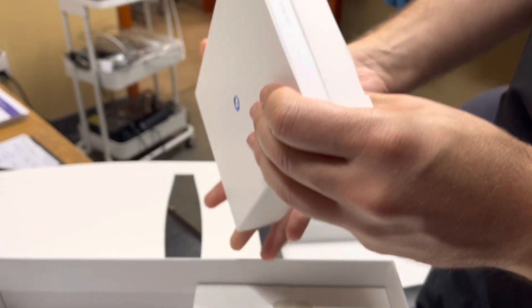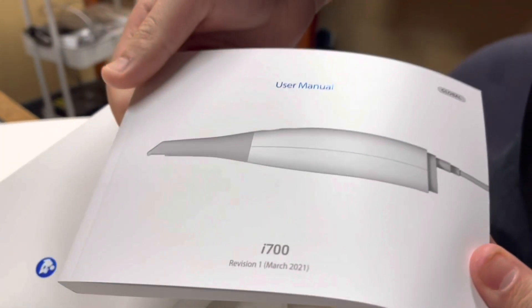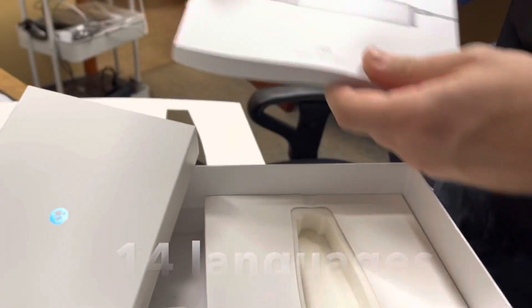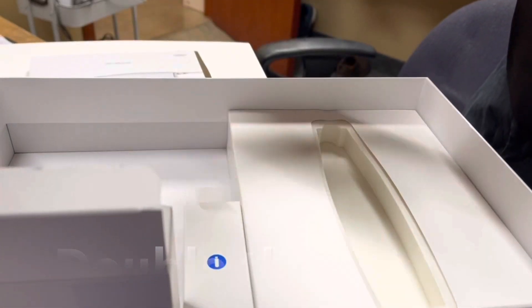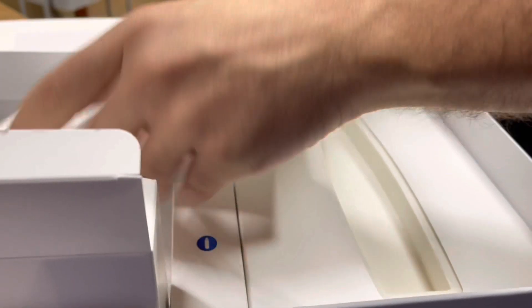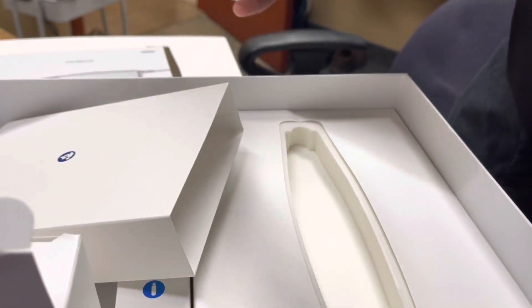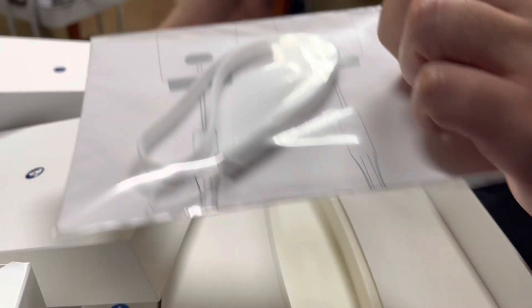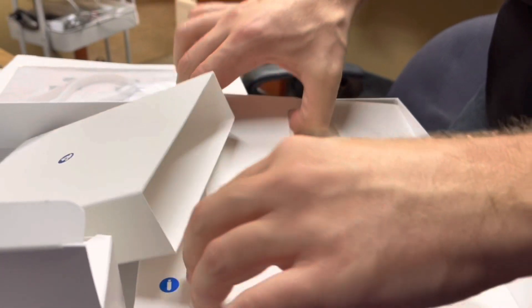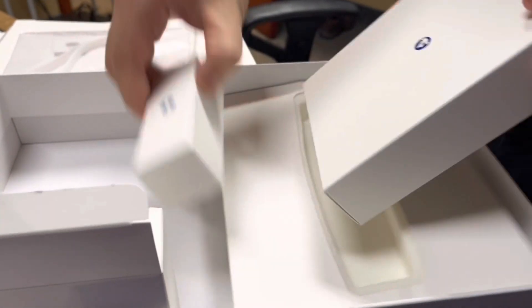There's also a user manual with 14 different languages. This camera goes at double the speed of the last i500, which is incredible — it's got about 65 frames per second, which is phenomenal for scanning. There's also a wrist strap you can place on to make sure you're not going to drop it when you're not thinking about holding the camera. This is something that should be encouraged with your team when they're using the scanner.